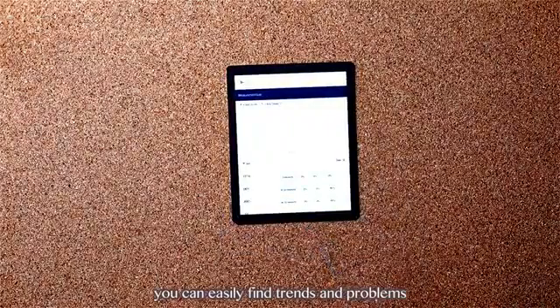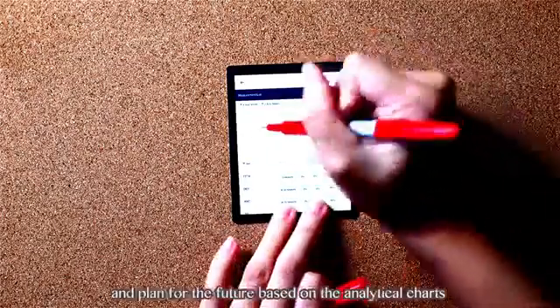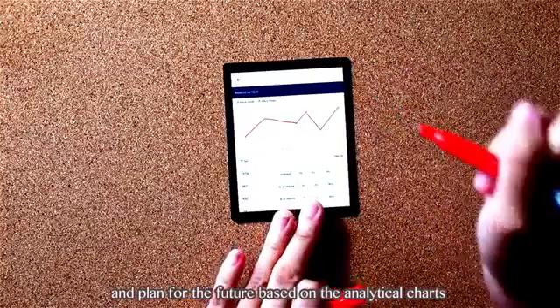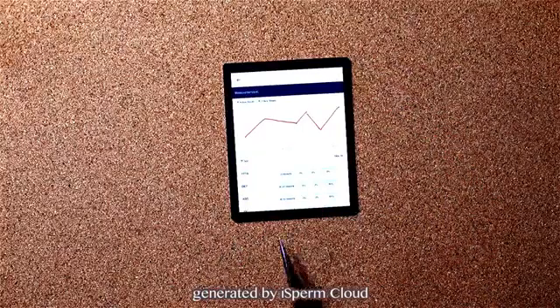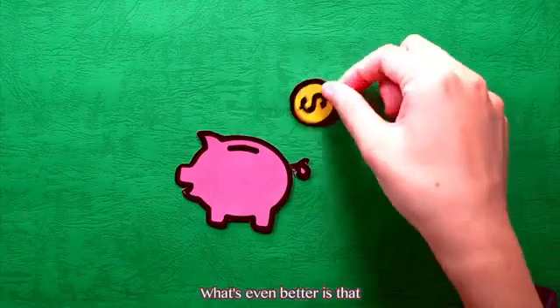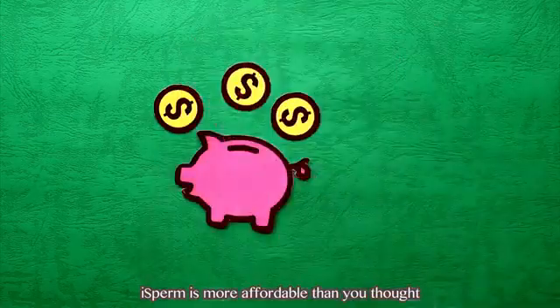Also, you can easily find trends and problems, and plan for the future based on the analytical charts generated by iSperm Cloud. What's even better is that iSperm is more affordable than you thought.